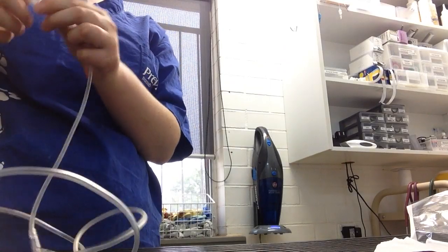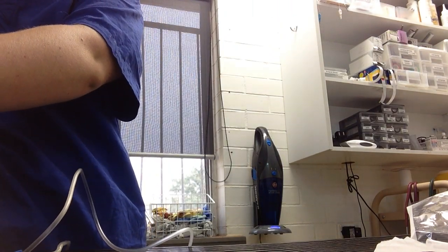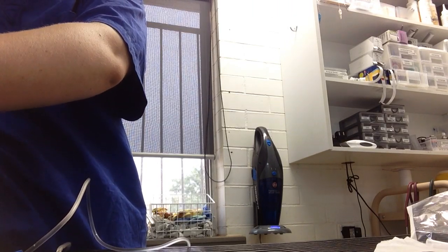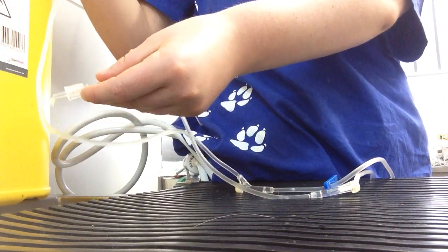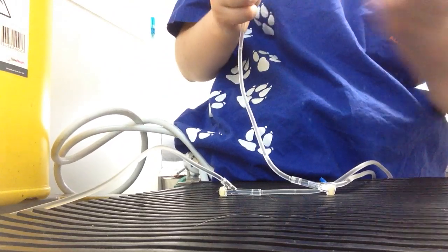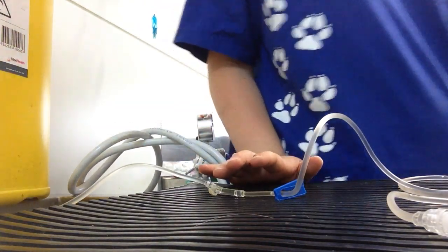I'm just going to run it through to make sure there's no air bubbles. I'm just going to put the end piece on there until we attach the extension set for the patient. And then I'm going to label what that is with a date so that we know when we need to dispose of it.